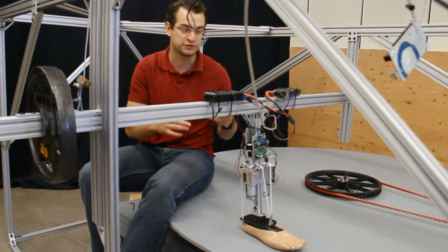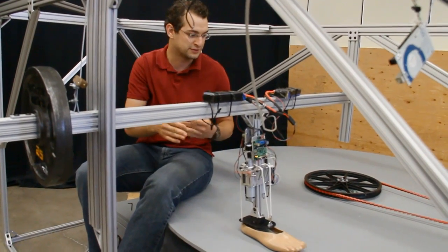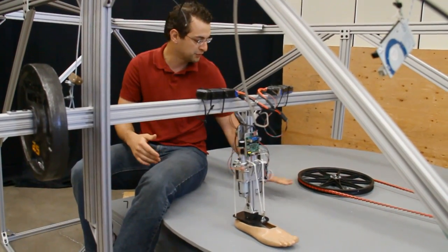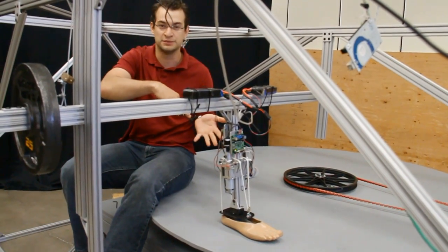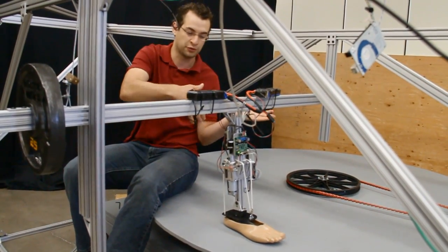We could use a regular treadmill, but that always goes in a straight line. To test the turning motion, we built this circular treadmill where, to walk on top, the foot has to turn, similar to how a person would turn in regular gait.